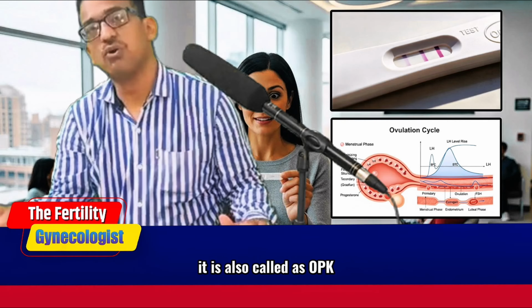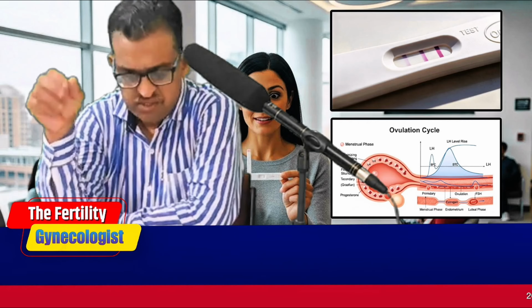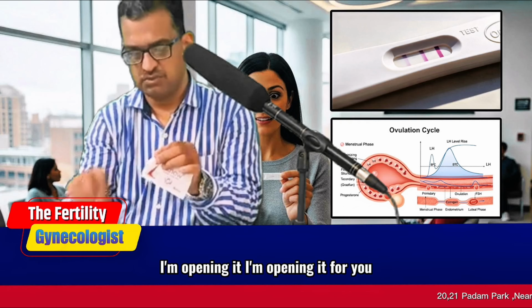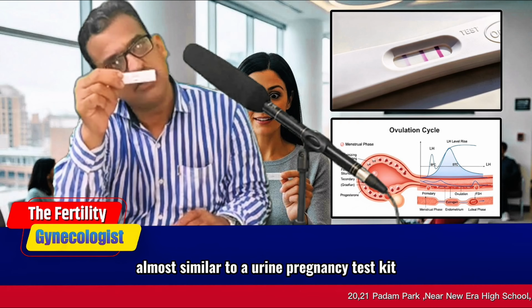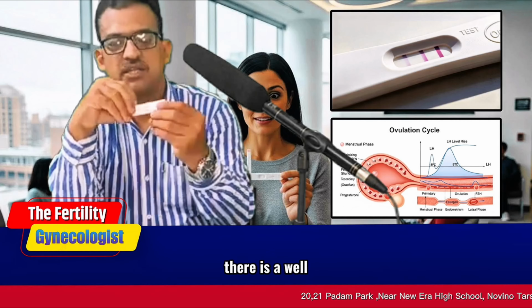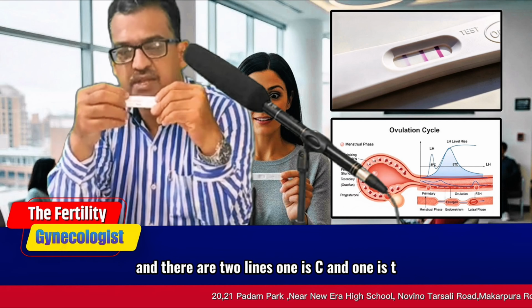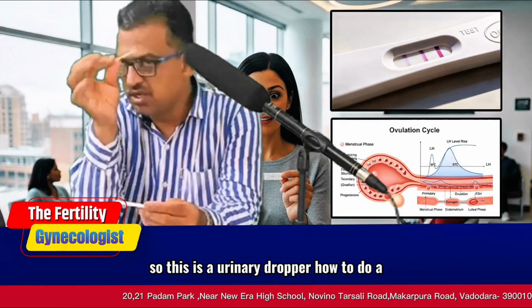It is also called OPK in local language, that is an Ovulation Predictor Kit. So it is like a cassette. I'm opening it for you. This is a cassette. It is almost similar to a urine pregnancy test kit. There is a well and there are two lines, one is C and one is T. C is for control and T is for test. So this is a urinary dropper.